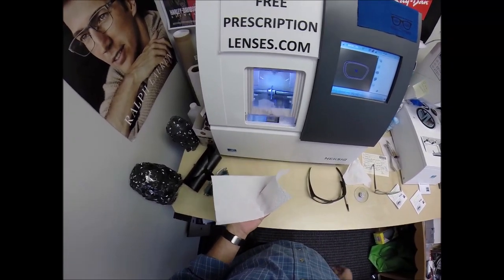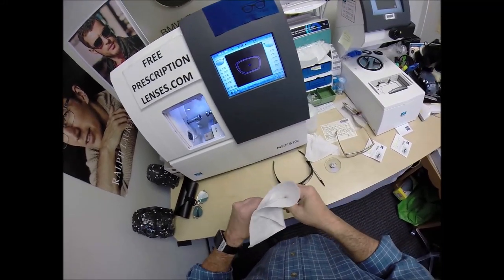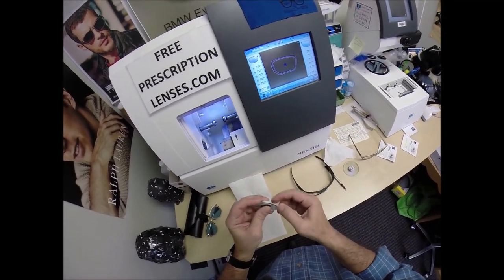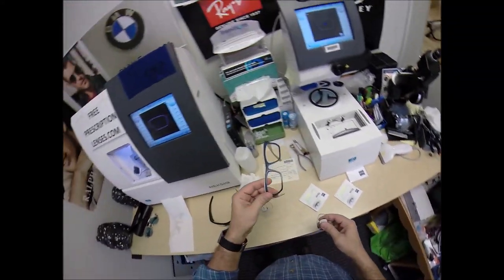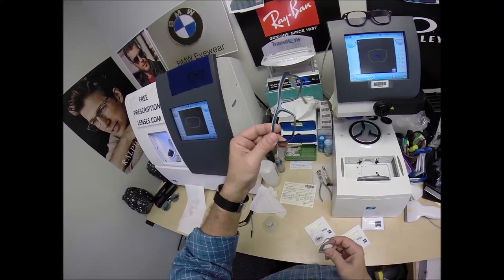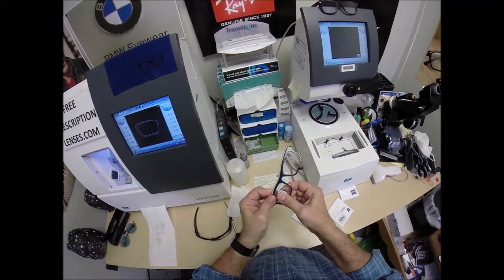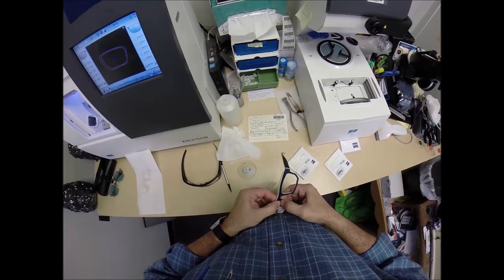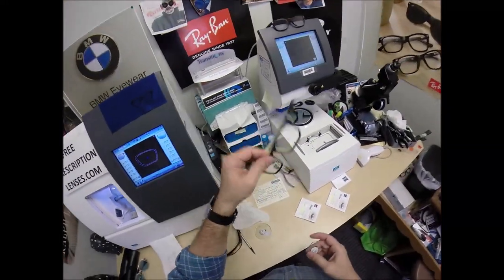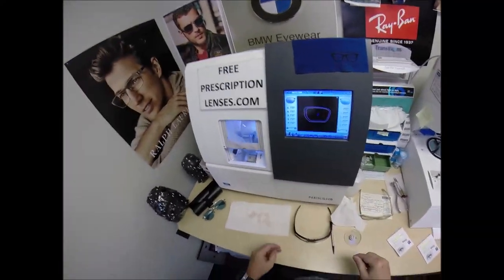I'll take that lens out, open the door, dry everything off, and let's watch me be nervous. I'm going to try to insert this into what used to be a living, breathing organism — well, the horn wasn't breathing, but it was attached to something that was. I'm going to tuck it in at the outside corner and press in there, working with the frame. It does not want to go. So I'm going to take it out. I cannot use heat on buffalo horn — I'm going to have to do a cold mount. I'll take it down a tenth of a millimeter until it's the perfect size.